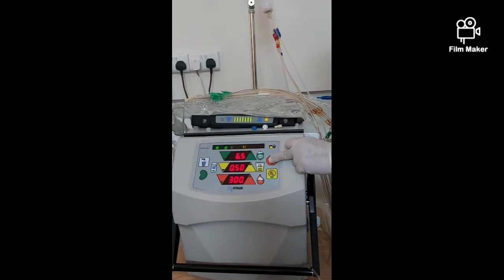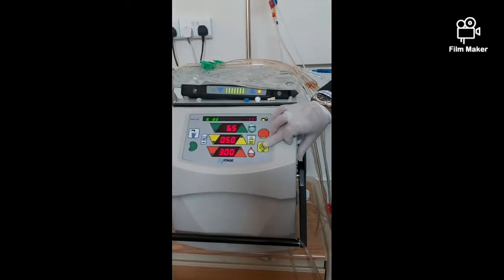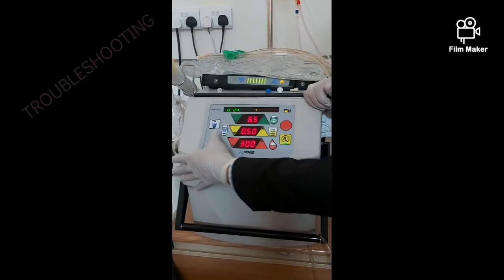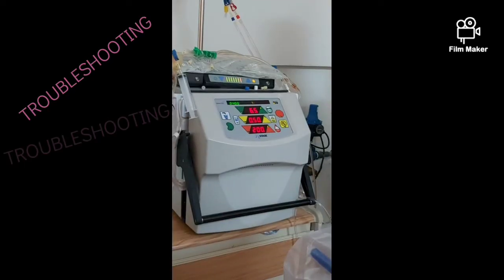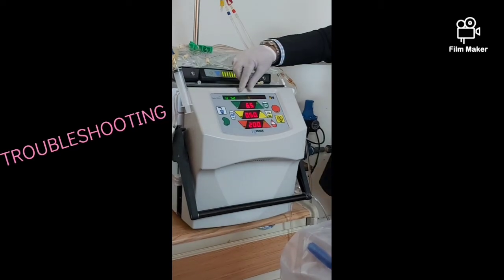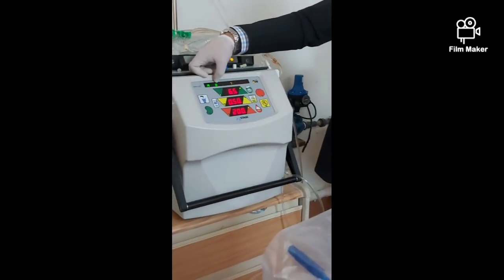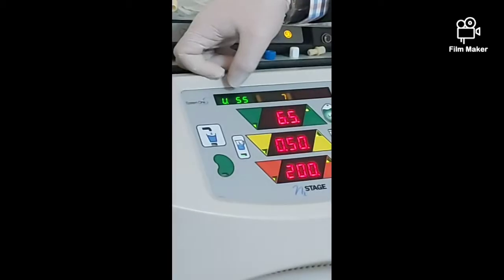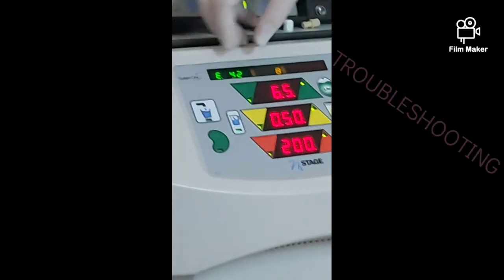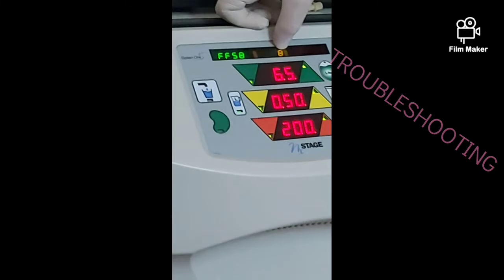It will become zero-zero. Now you see alarm number 11. What is number 11? Mute and stop. Mute stops the sound; stop halts what you are doing to remove the alarm number. For troubleshooting alarms one to nine: V means venous pressure, A means arterial pressure, E means TMP. TMP reading is 49. FF means flow fraction, and caution numbers appear in yellow color — no need to worry, just mute. Yellow color alarms, numbers one to nine, are not critical — the machine will resolve them.